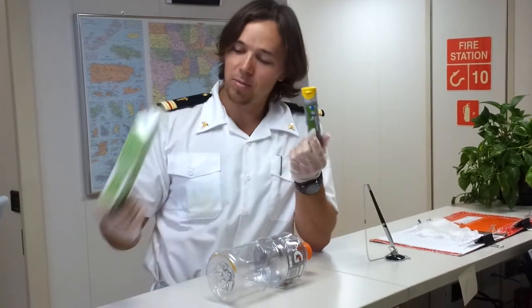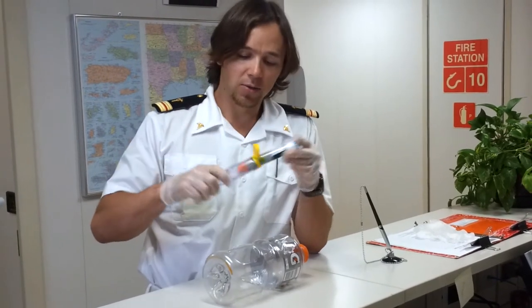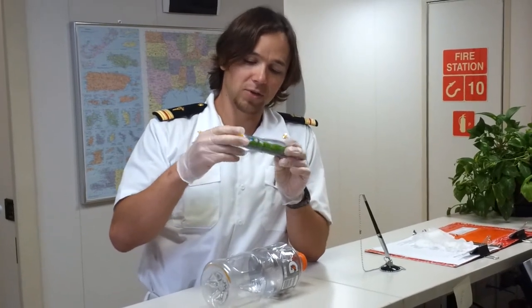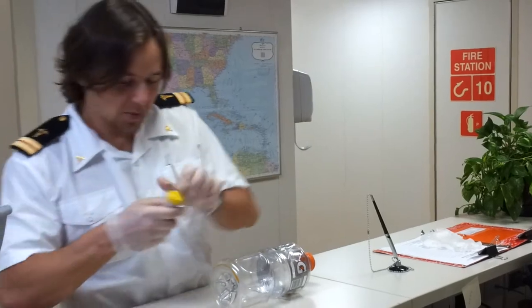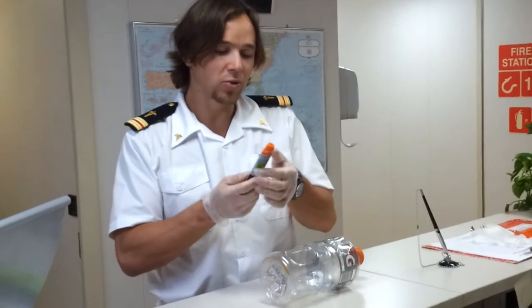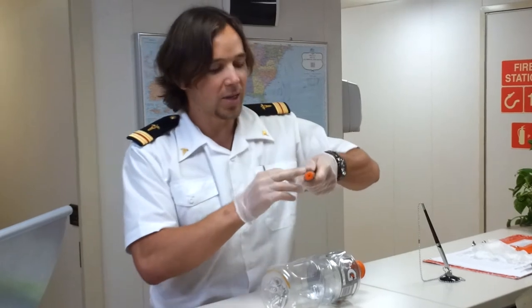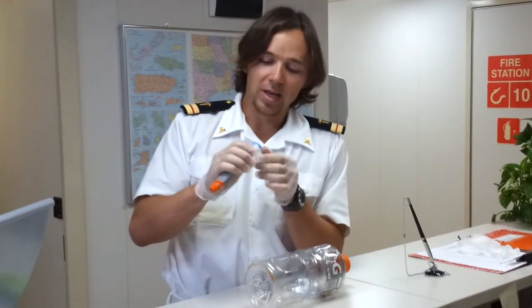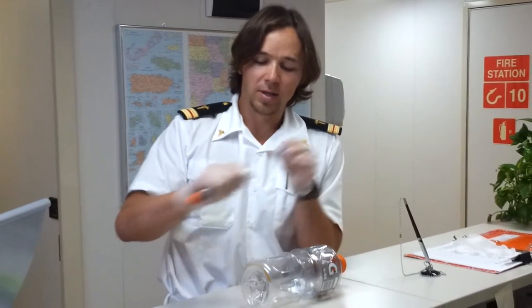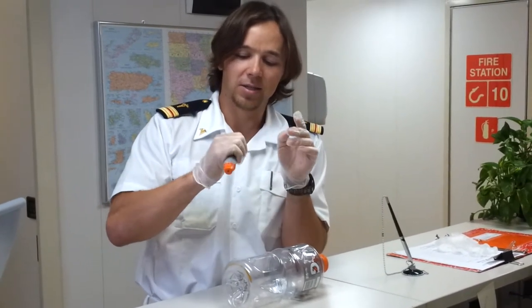This is the junior one, but it's an expired one, so we can use it for our purposes. It stays in this case for safety reasons. We're going to take it out — you remove it. You've got to be very careful not to touch the orange part of it. There's a little hole and that's where the needle comes out. There's a safety mechanism applied right on top of it. When you remove it, it's aimed for action. If you put it back, it's disabled again.